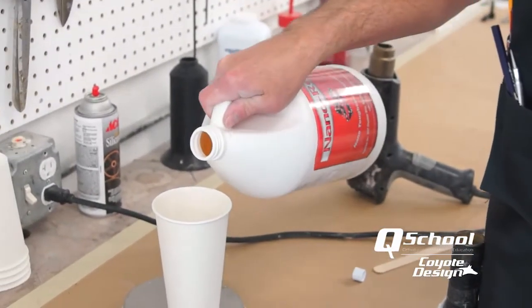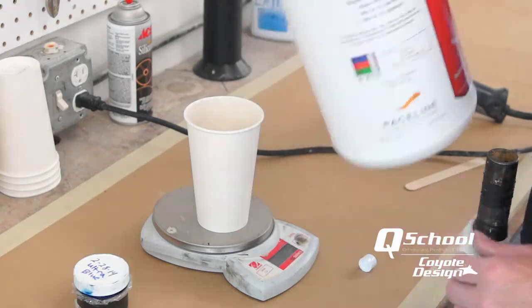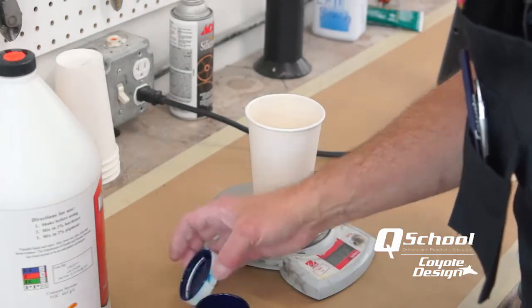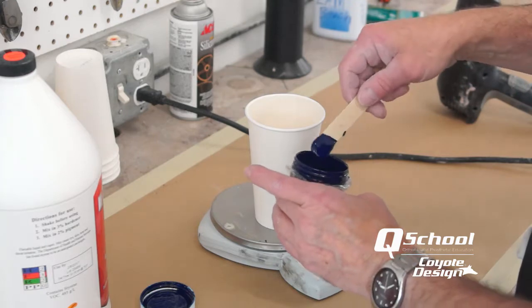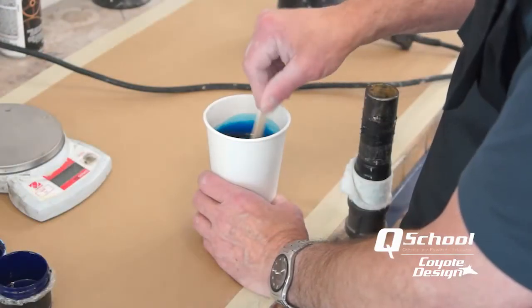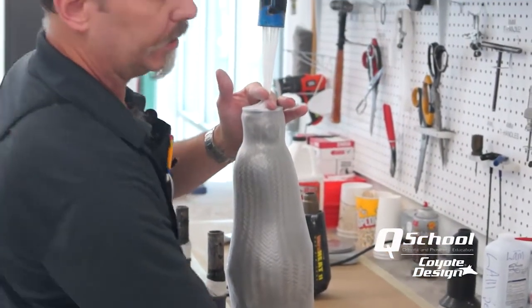Let's mix up our resin and put just a little bit of blue pigment in it today. I'm going to mix this right by the manufacturer's recommendations — it says right on the bottle, 3% hardener, 2% pigment. This is an ultra blue we get from Cascade — I'll stir that in. 2% of the ultra blue would really be strong. You can see the little white dots of hardener mixing in — that looks nice, that'll be a nice blue on that. Kick our vacuum on — at 15 pounds that's drawn down on that bag plenty, and on these thinner resins it does work well to lower your vacuum. The potential for starving out is much lower.